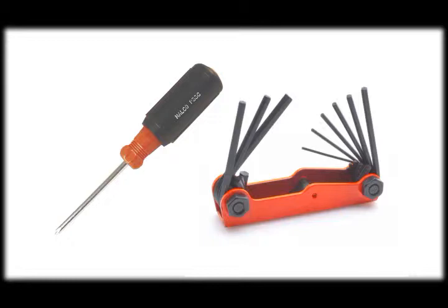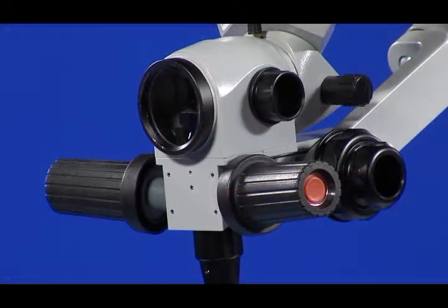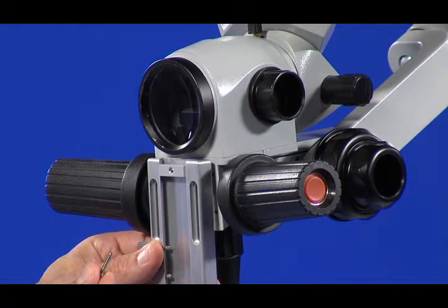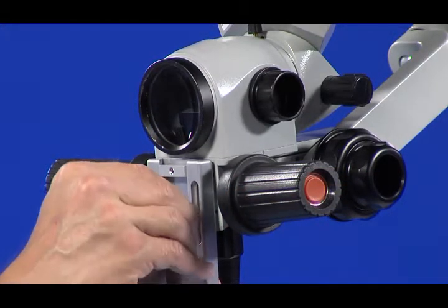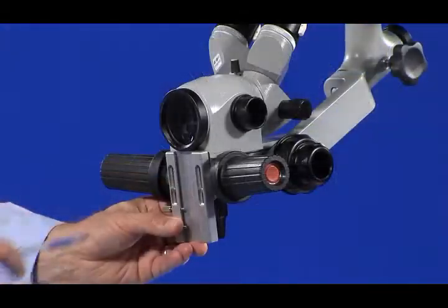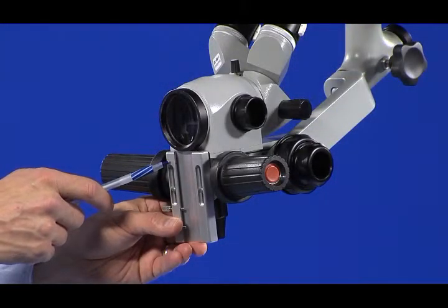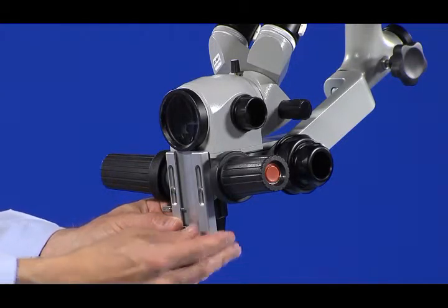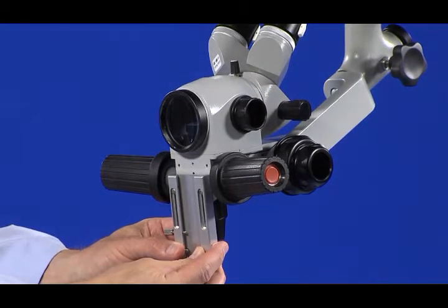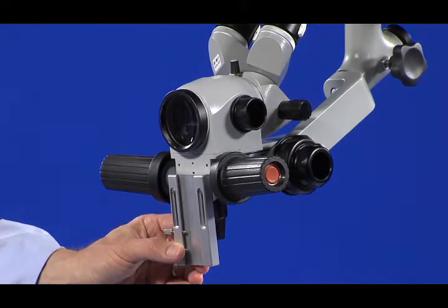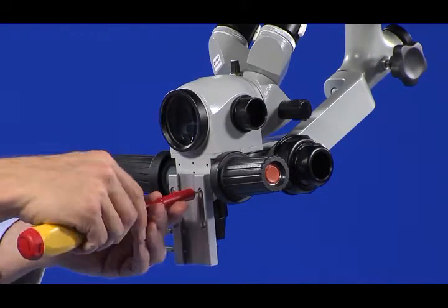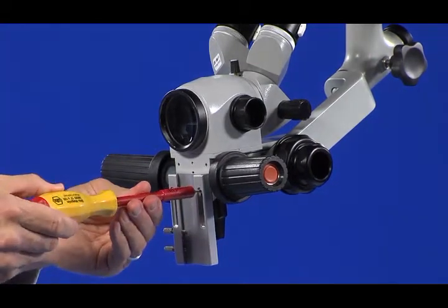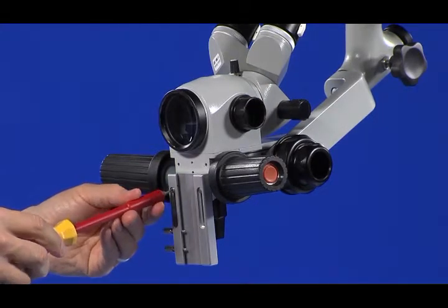The tools required will either be a Phillips-head screwdriver or a hex wrench, depending on the bolts supplied in the mounting kit. First, attach adapter plate to scope with bolts provided. Be sure to align the adapter plate by positioning it as far forward or backward as possible in the bolt slots on the adapter plate. When the adapter plate is correctly positioned, tighten the bolts securely to prevent any movement when the other components are installed and used.